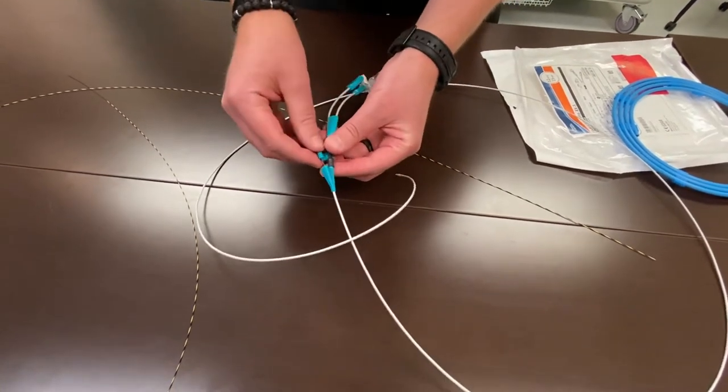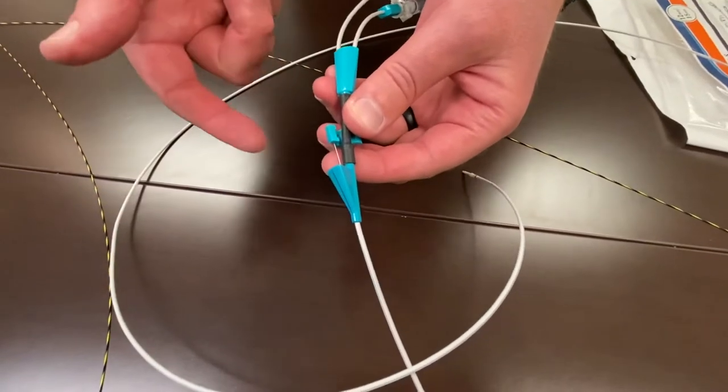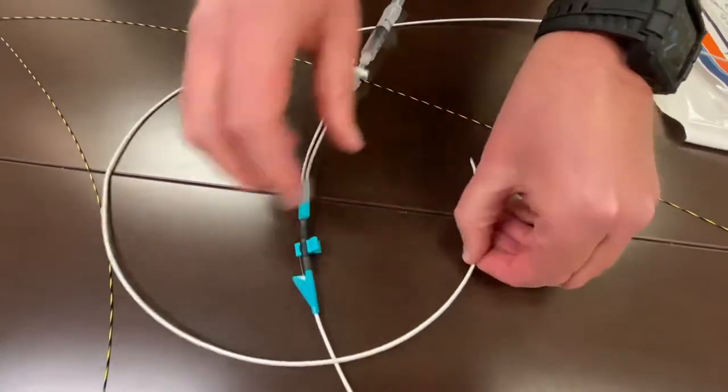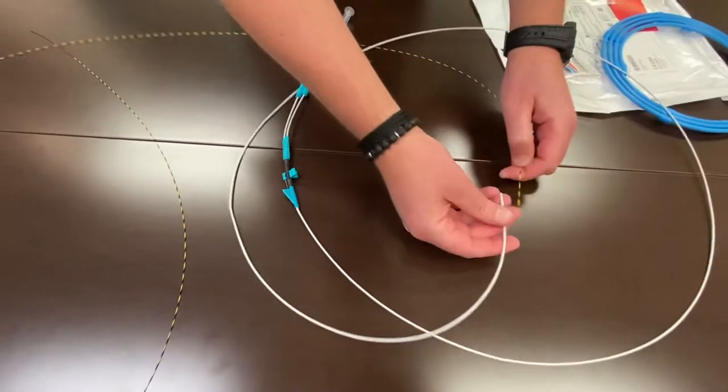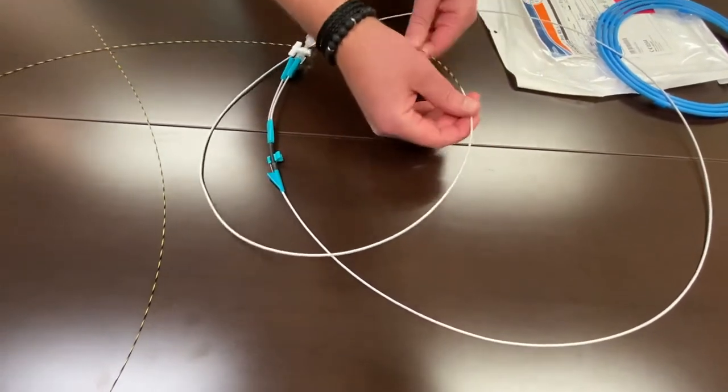Like we said, there's a stylet in this balloon. This is a metal stylet that lives in the guide wire channel of the balloon. This balloon is loaded, just like all other devices, perfectly front loaded. The wire will kick out early.